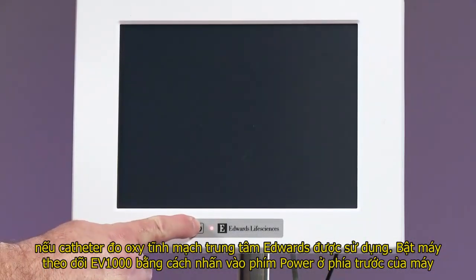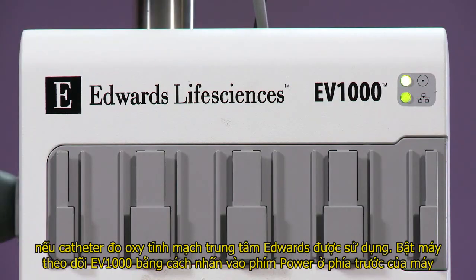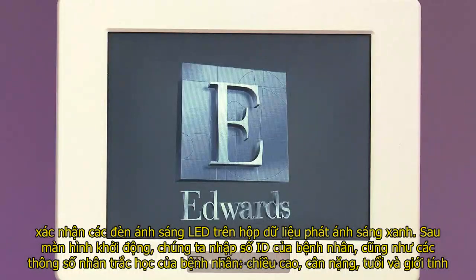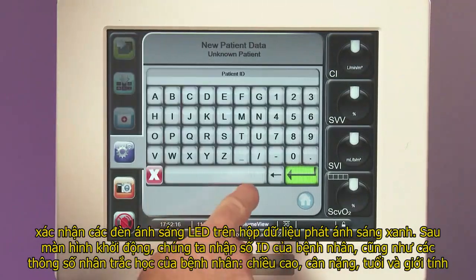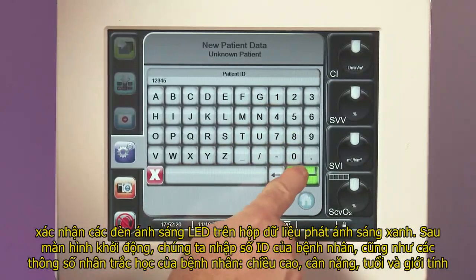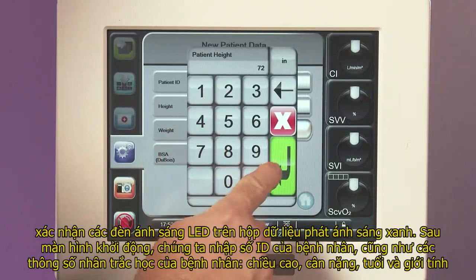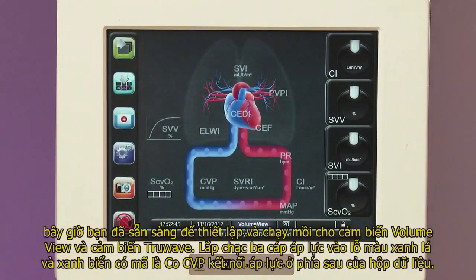Turn on the EV1000 clinical platform by pressing the power button on the front of the monitor. Confirm that the data box LED lights are illuminated green. After the startup screen, enter the patient's ID number as well as their biometric data: height, weight, age, and gender. You are now ready to set up and prime the VolumeView sensor and TrueWave transducer.